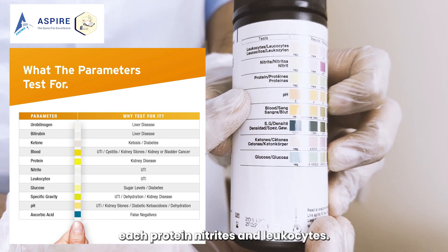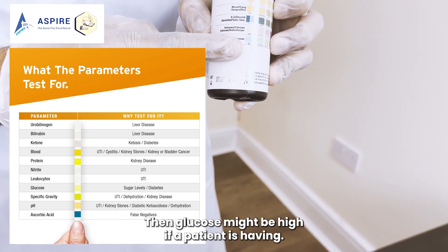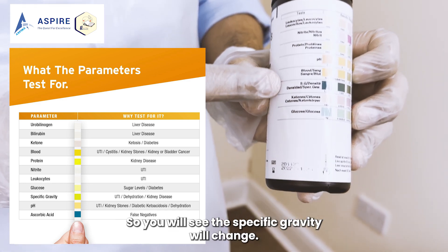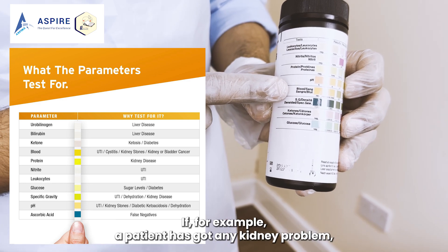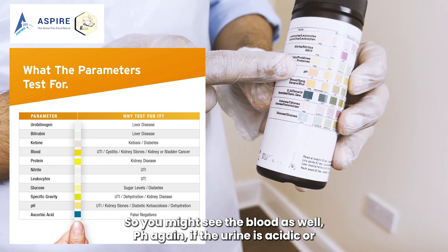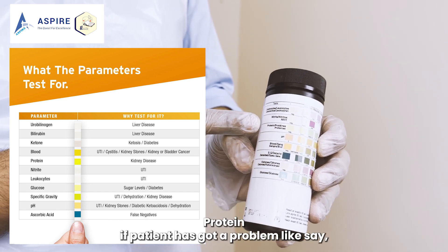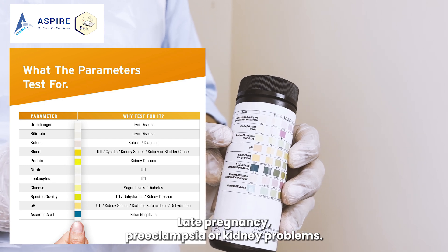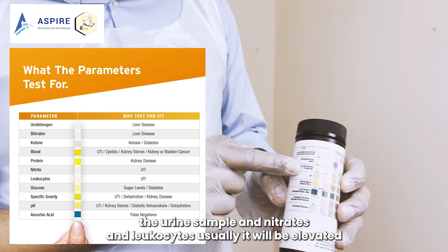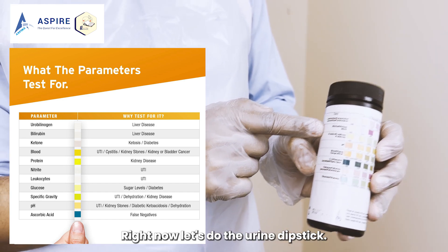If the patient has diabetes, glucose might be high. If the patient is having DKA, you might see ketones in the urine. If the patient is dehydrated, the specific gravity will change. For any kidney problem like glomerulonephritis or a stone, you might see blood. pH shows if the urine is acidic or alkaline. Protein may be elevated in late pregnancy, preeclampsia, or kidney problems. Nitrites and leukocytes are usually elevated in UTI, urinary tract infection.